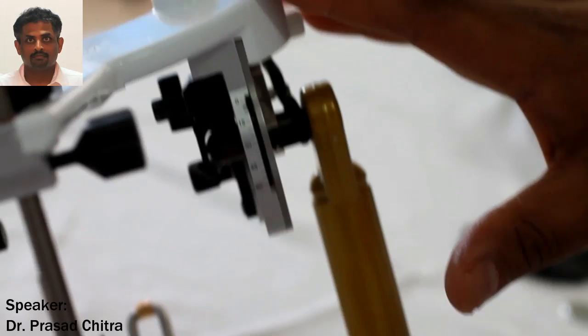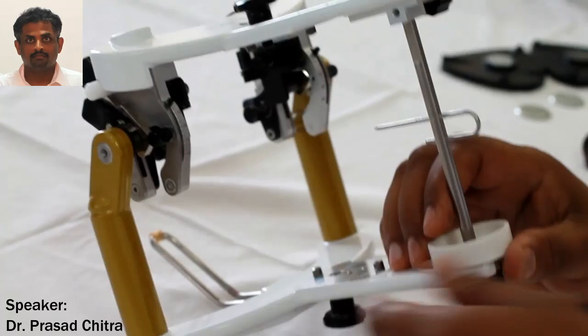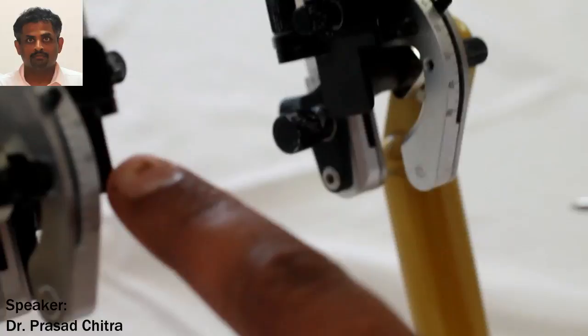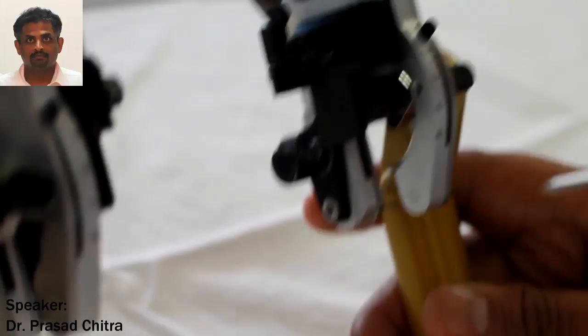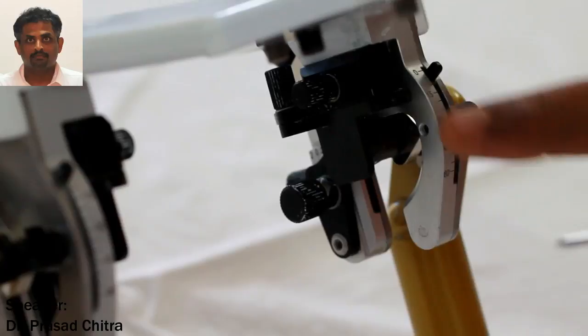Most students are always anxious about all the various readings they see on these articulators and are never truly confident about what all these readings are actually denoting. So today's video is basically to demystify semi-adjustable articulators and to explain the basic parts, features, and meanings of all the values which are printed or present on this articulator.